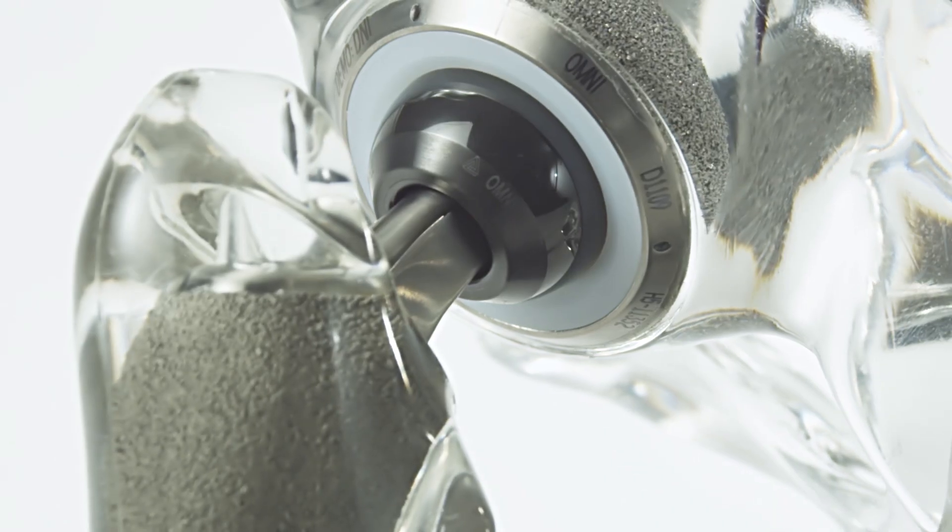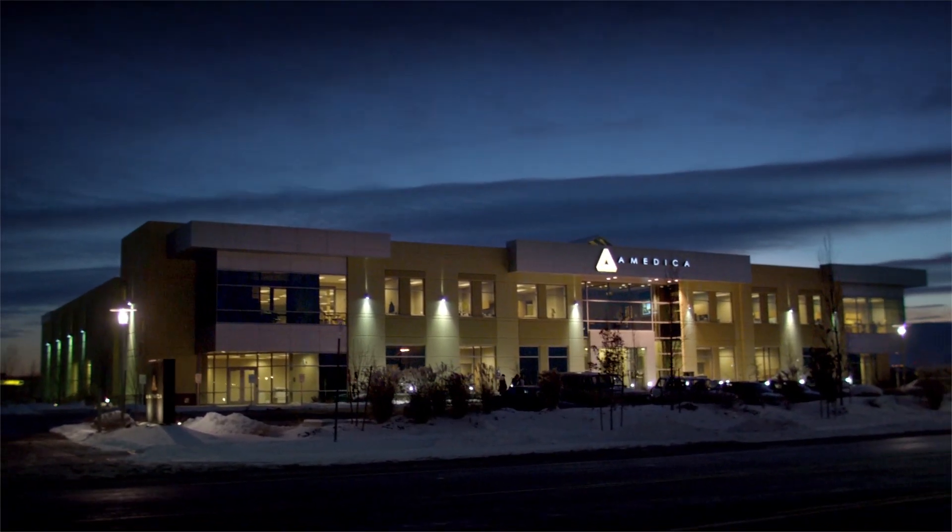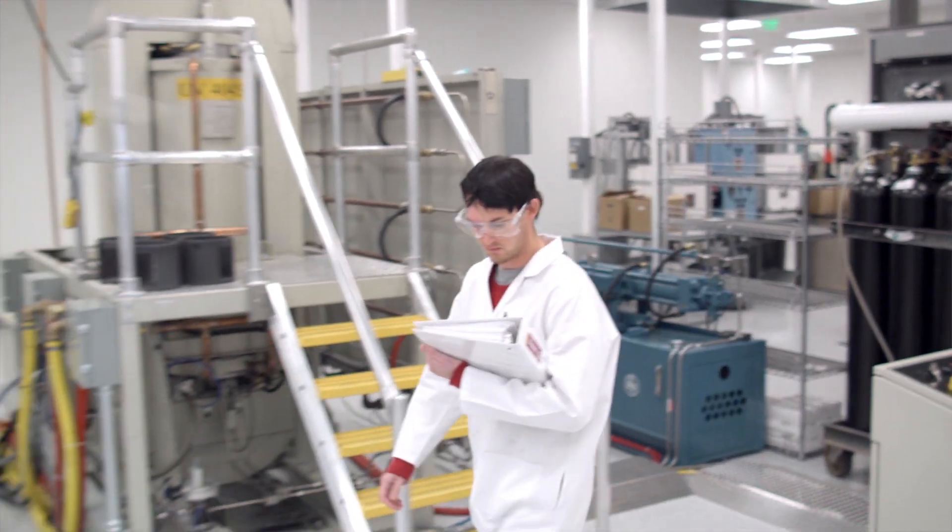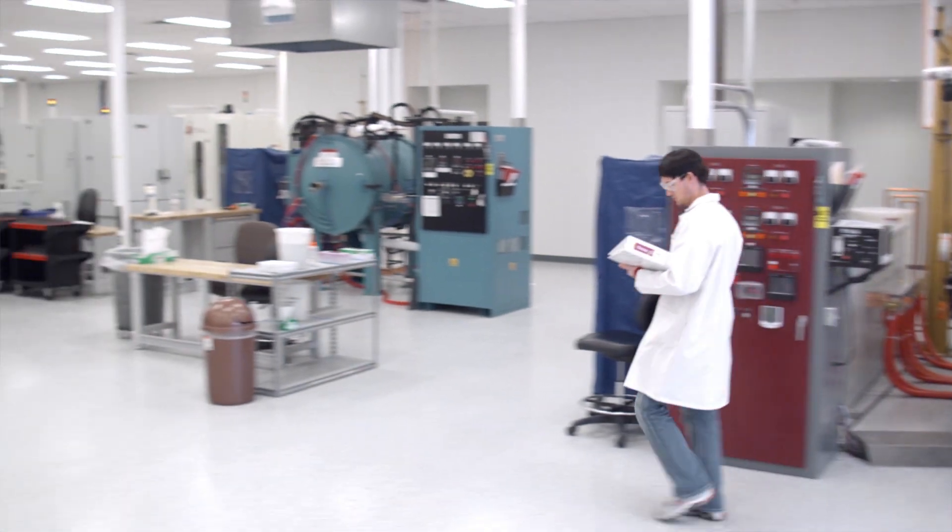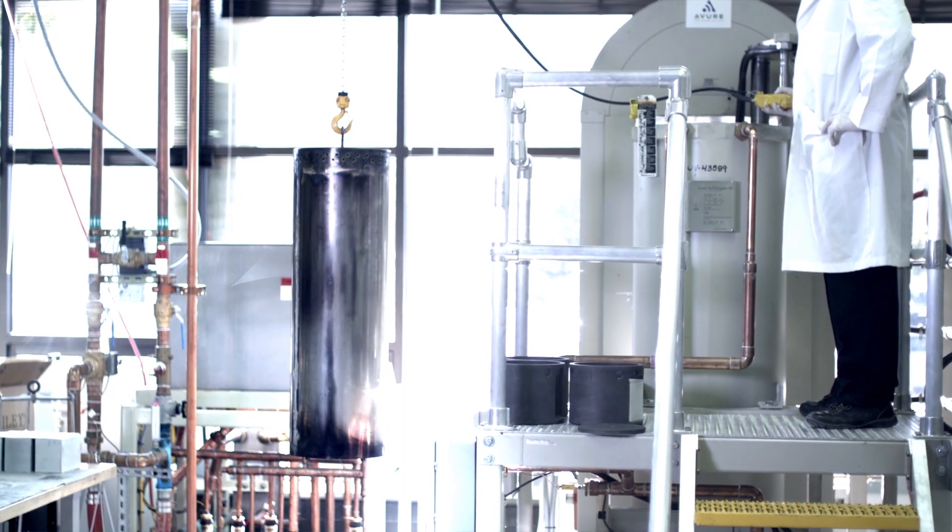All three types of medical grade silicon nitride ceramic are produced in Amedica's one of a kind manufacturing plant. The only facility in the world manufacturing medical grade silicon nitride ceramic implants.